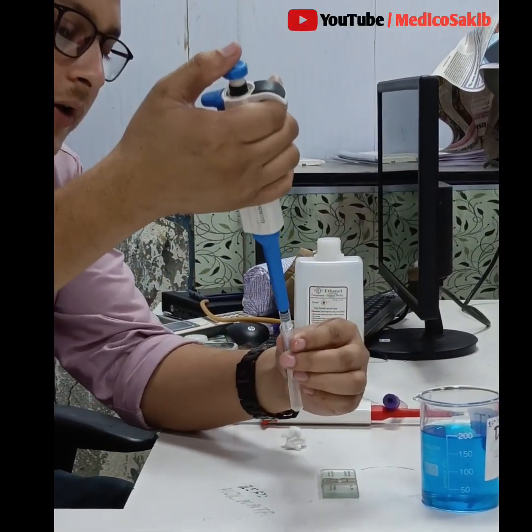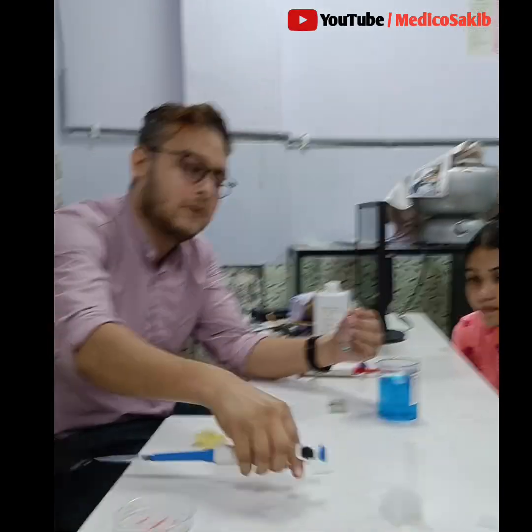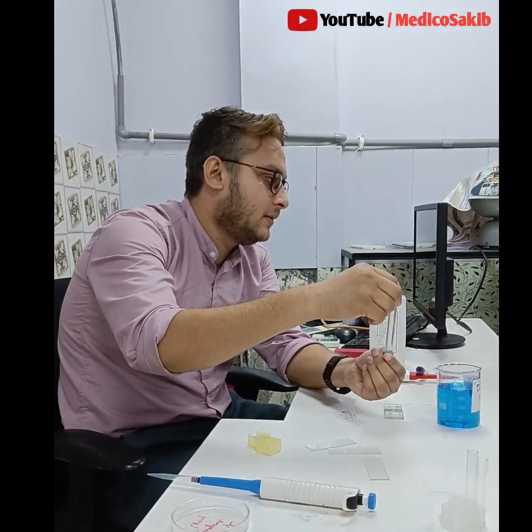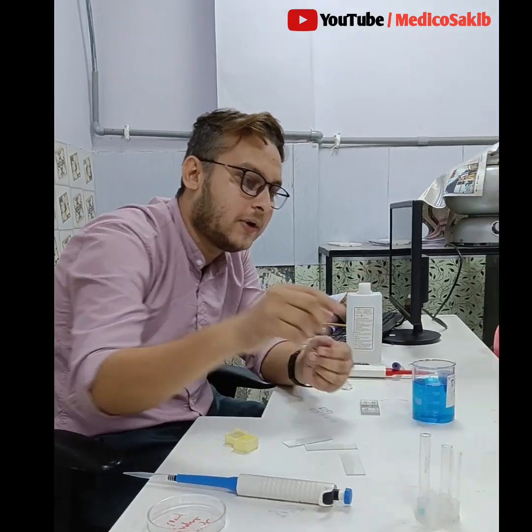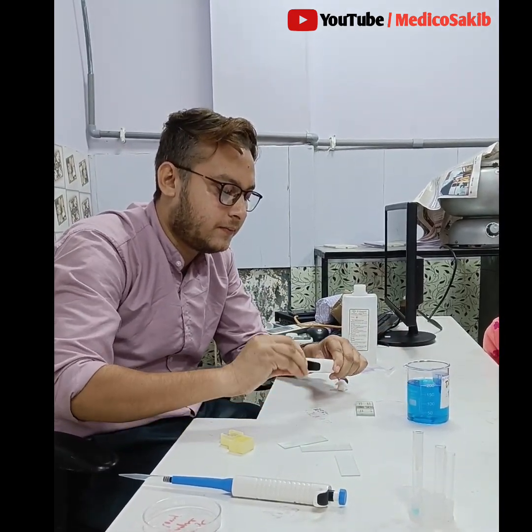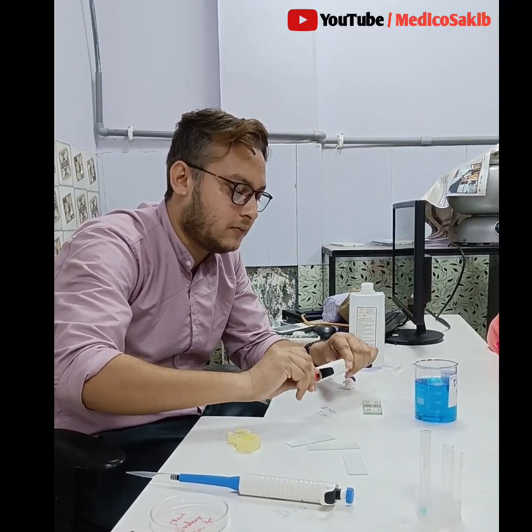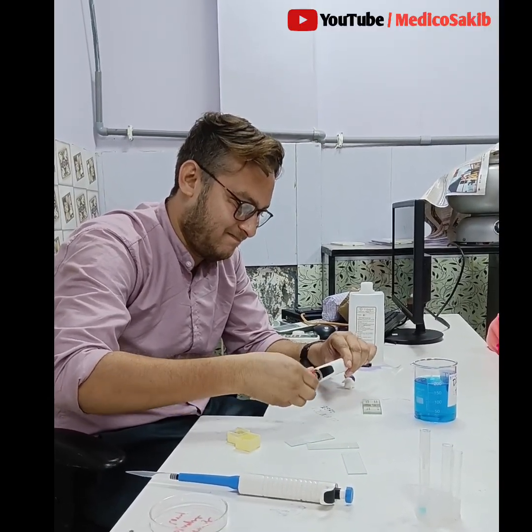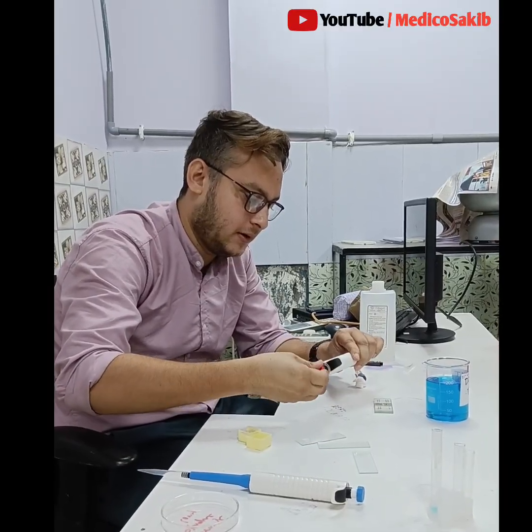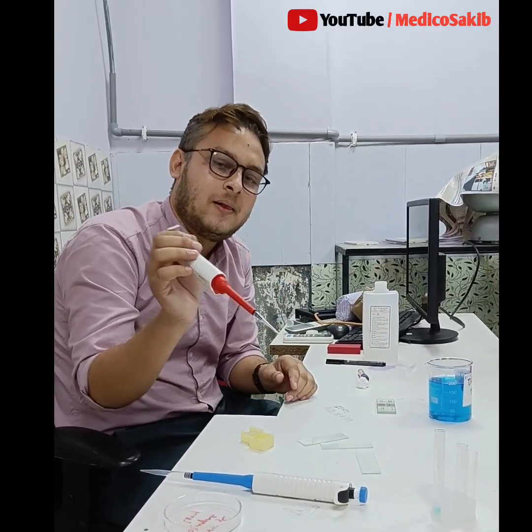So at first, in case of counting the WBC, we take a hemocytometer which consists of improved Neubauer chamber, WBC and RBC pipette, and we basically dilute the cell in case of WBC counting 1:20 with the WBC diluting fluid. So at first take WBC diluting fluid, then add proportional amount of blood, mix well and charge the Neubauer chamber.